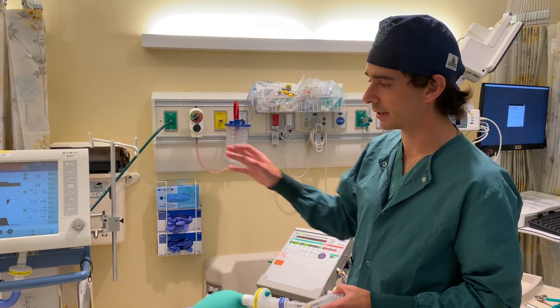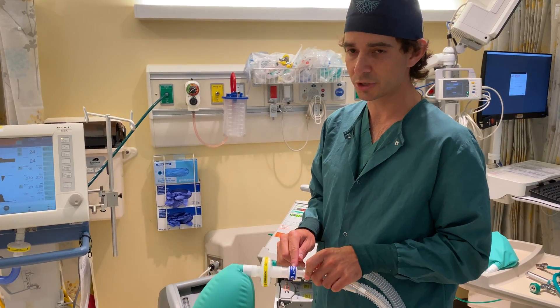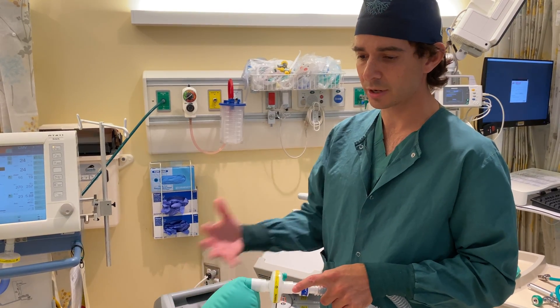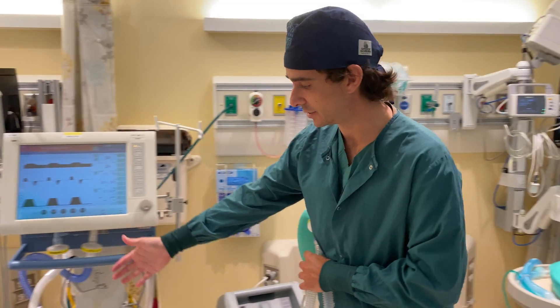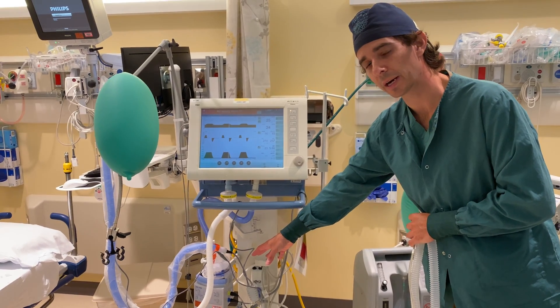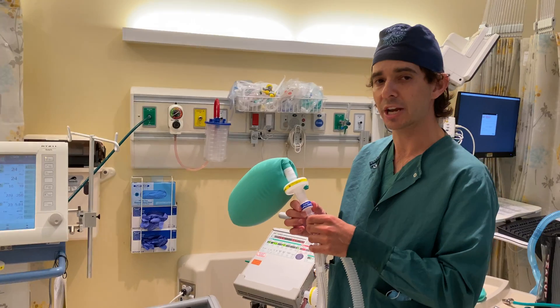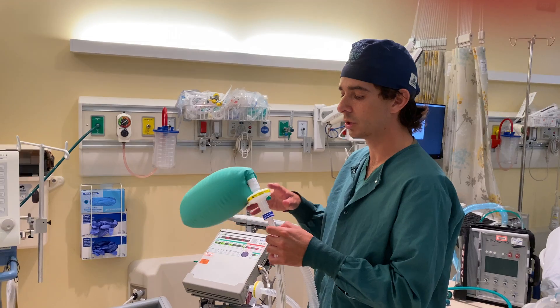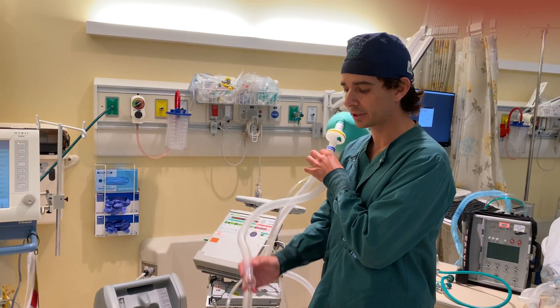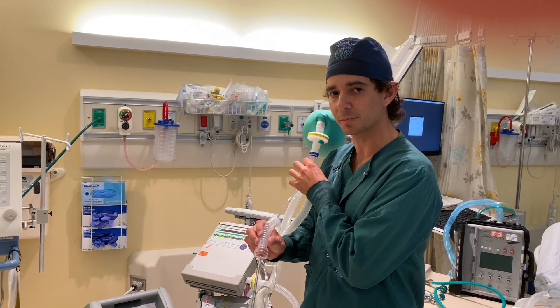Another difference between our transport ventilator and our traditional ICU ventilator is humidification. All these systems need a humidification mechanism. Here we're using a heat moisture exchanger, or HME filter. This HME will prevent moisture and heat from going back into the circuit and being lost to the room. Whereas the ICU ventilator has a more complex setup that heats and humidifies the circuit more effectively, but requires electricity and distilled water changed quite regularly. These HMEs also need to be changed regularly according to manufacturer's specifications. On top of the HME, you'll notice another viral filter to prevent viral particles from leaving the patient out the expiratory limb. This viral filter can be placed near the PEEP valve, though it can sometimes be difficult to insert. Check the manufacturer's specifications and tip sheet for how to do that.